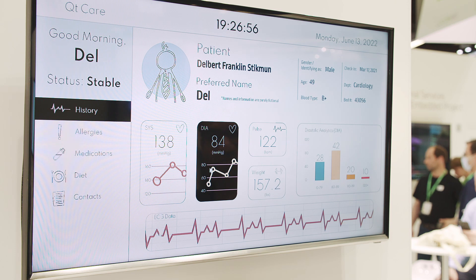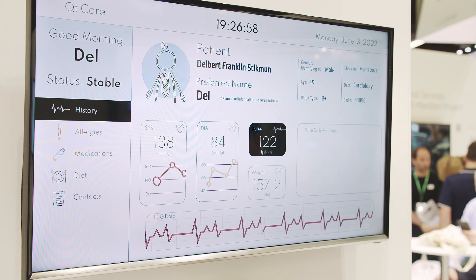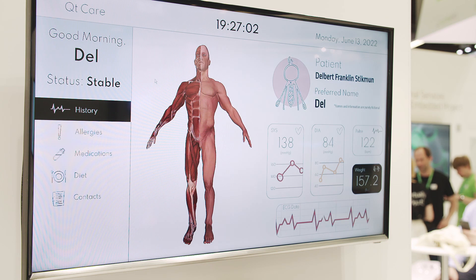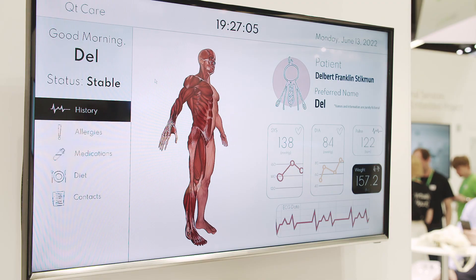It's showing the different modules of Qt which can be used in the medical industry. Qt provides many values. One of its values is that it's a cross-platform framework. This demo is currently running on the IMX8 device, but if a company wants to change to another hardware vendor, the same codebase can be run on another hardware. This is one value we provide — a cross-platform application.